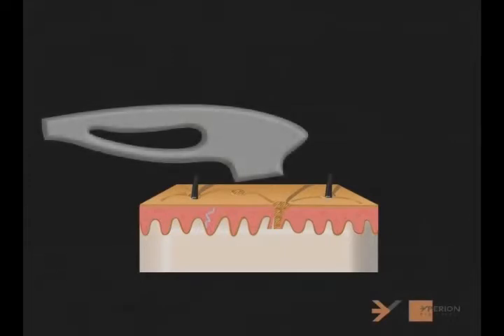A pulsed light apparatus or flash lamp system gives off a high-powered beam of natural light. The beam shines very briefly or pulses. Knowing which type of light beam is being emitted is essential to the efficient use of the apparatus and to guarantee the safety of the patient.